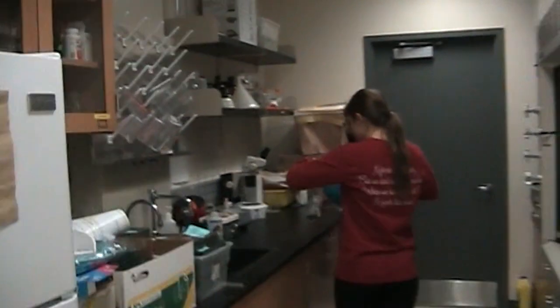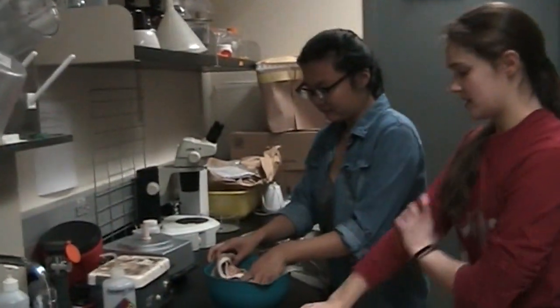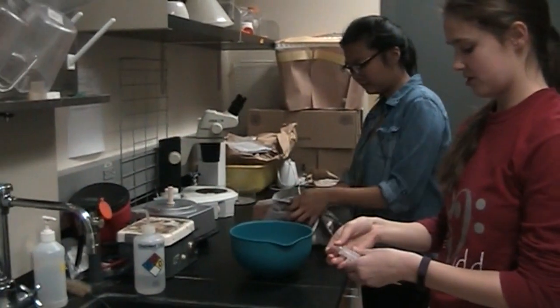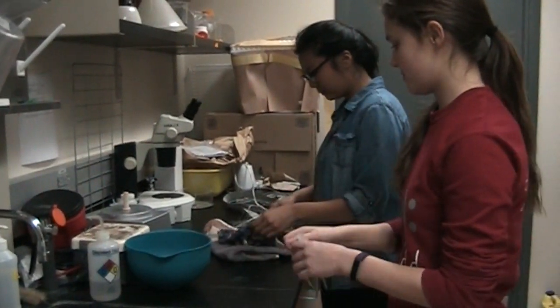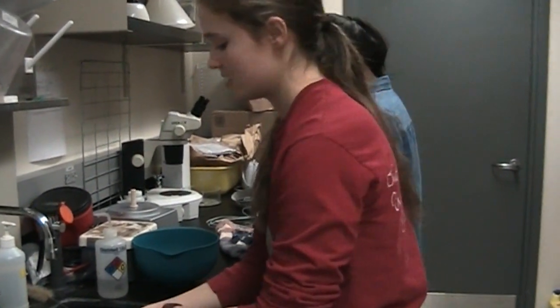And then we come over to the sink, and Michelle is going to remove the electrodes from the cap, and I'm going to clean out the syringes with water.